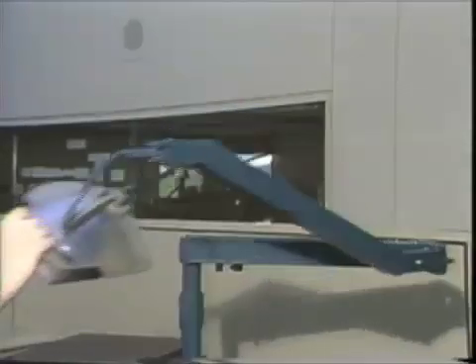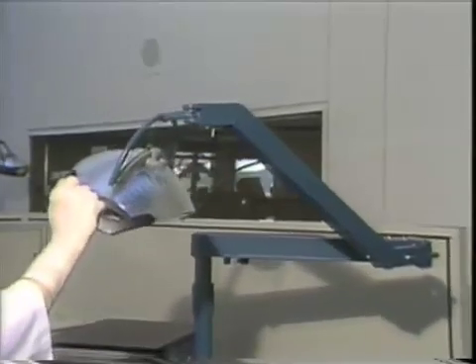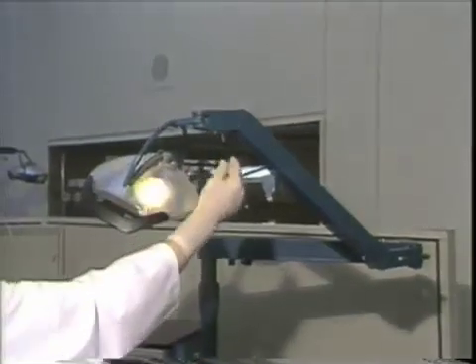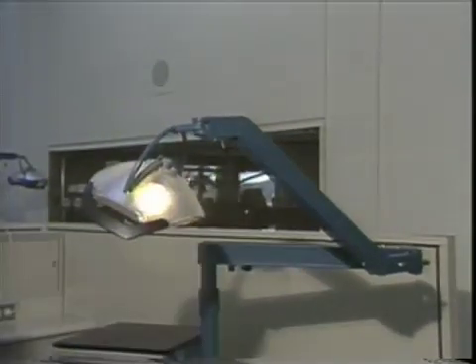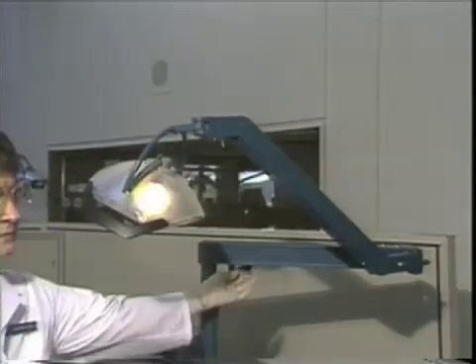To increase or decrease the light intensity, the adjustment may be made by the rheostat located on the undersurface of the light arm near the vertical post.